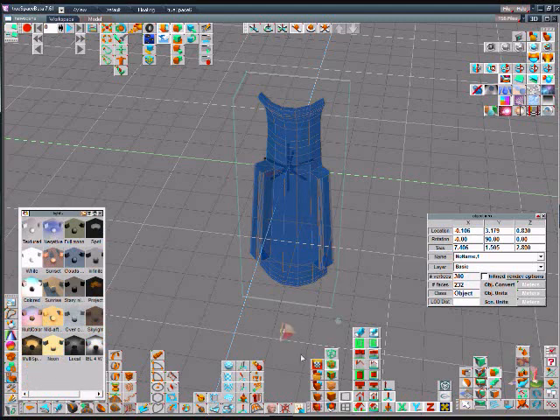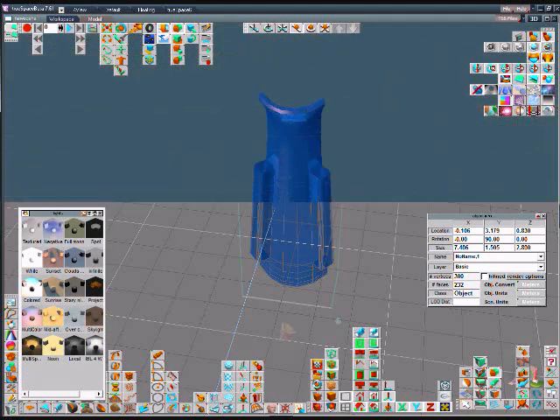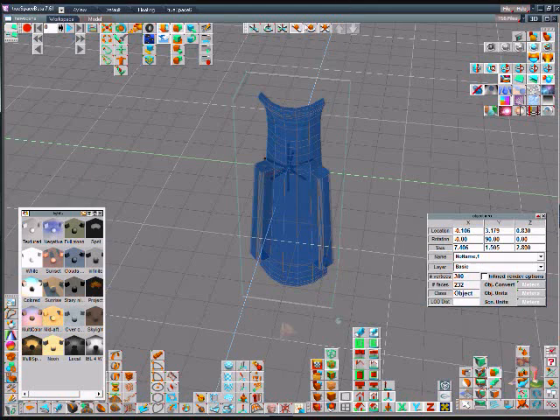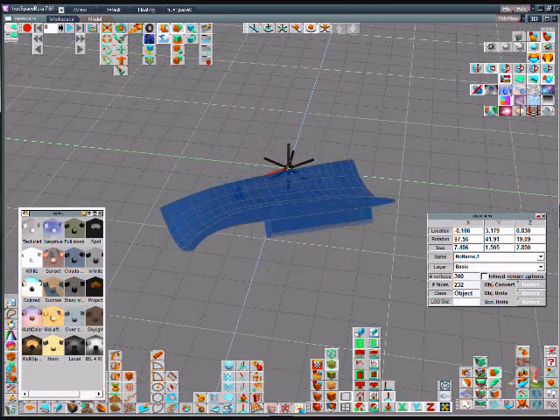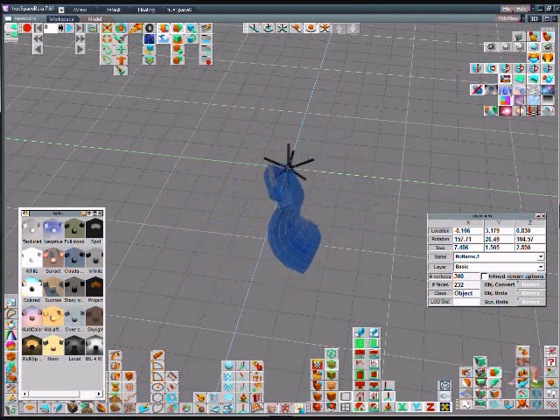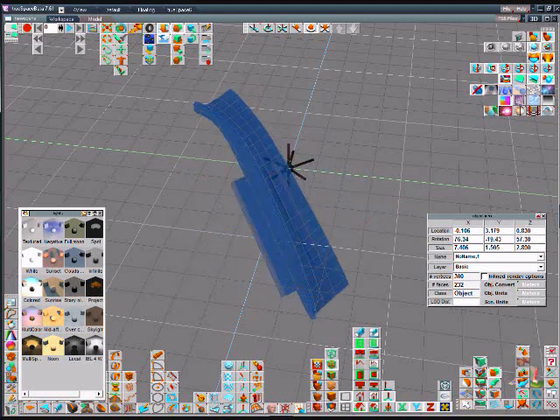Now we'll fix the lighting that we want to see the scene in. Now we'll turn the object to take a look at it from different directions to see if it fits the contour of the splint.